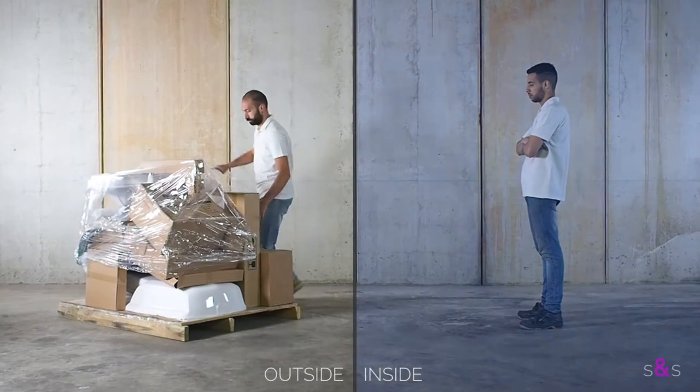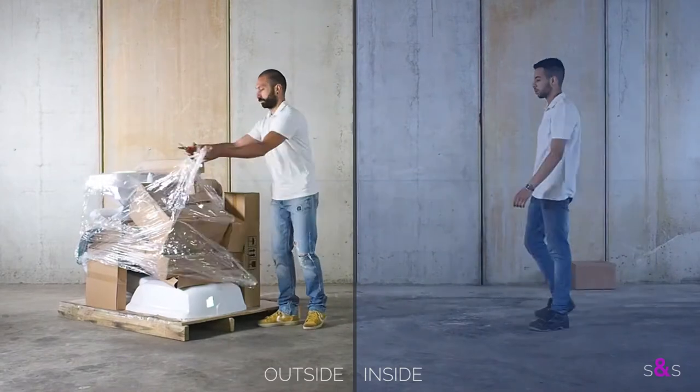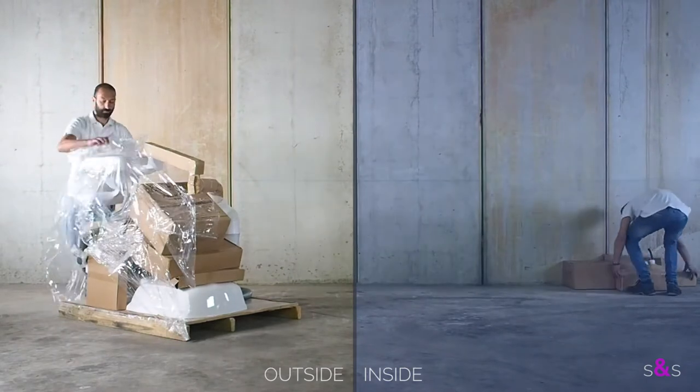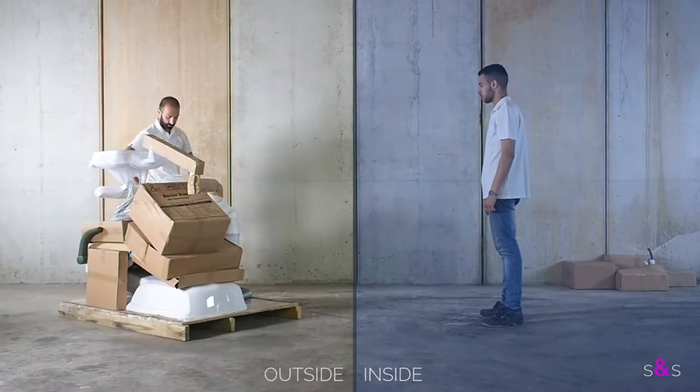Let's start the installation. The box is outside the clinic, or if you had the double wooden case, it's probably already inside. Start unpacking the unit and bring all the small cartons to the room where you would like to install the dental unit.